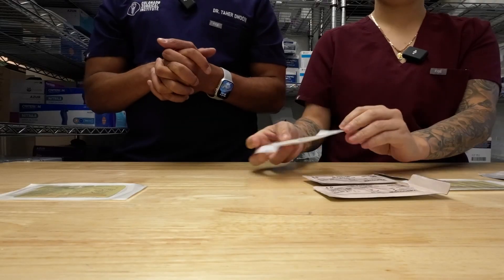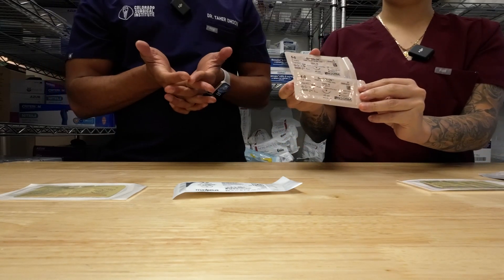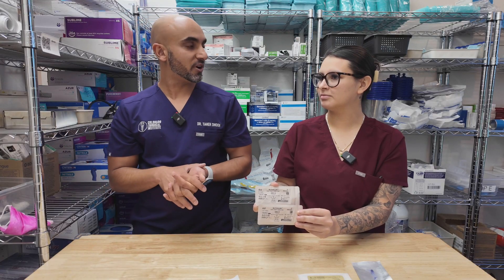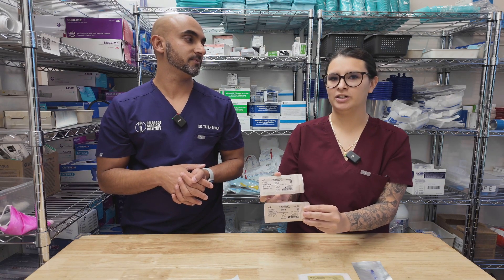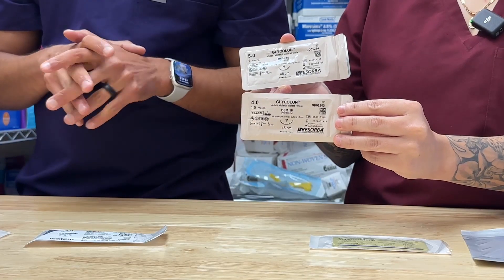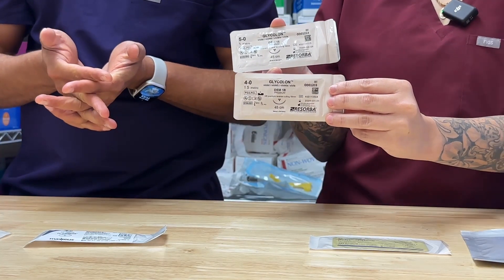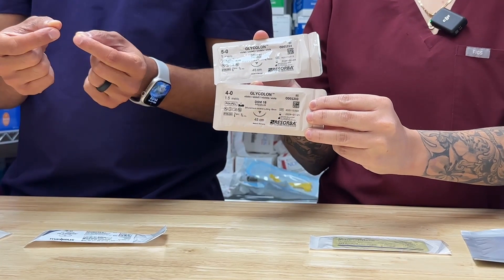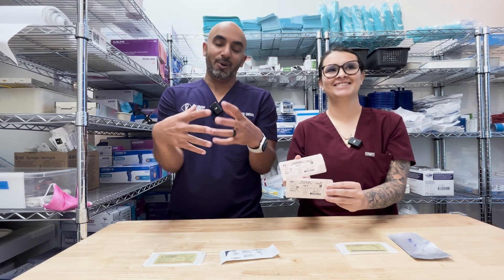The next one is going to be our glycolon. Do you have a preference on 4-0 versus 5-0? Not for me. When you watch docs suturing with it, do you feel like they do a better job one way or the other? I've only watched you, and I would say 4-0 — you maneuver a lot better. So yeah, I have a preference for the 4-0. A lot of people use 4-0 and 5-0 interchangeably. There are some docs who only use 5-0 for their full arch and it's totally fine. What I find is the 5-0 is a little thin, so when I'm suturing with it, it sometimes looks like spaghetti all bunched up together.